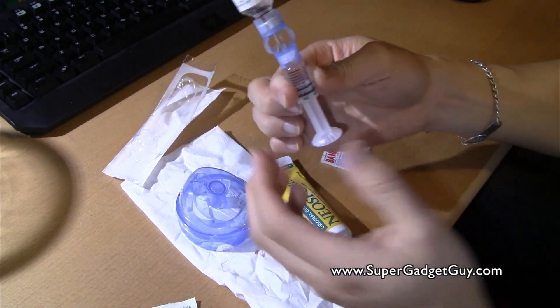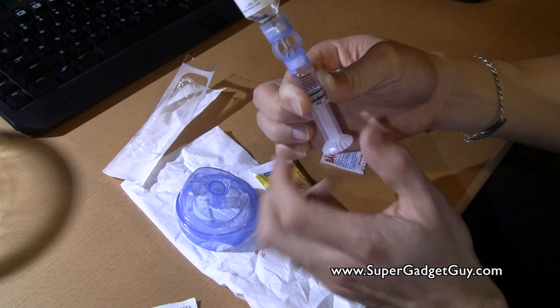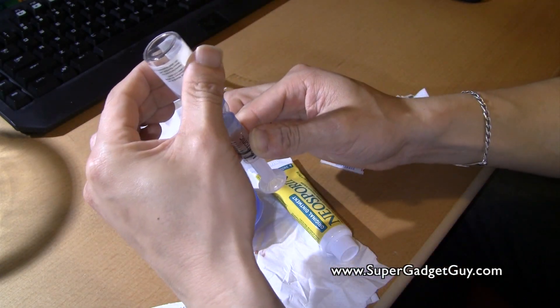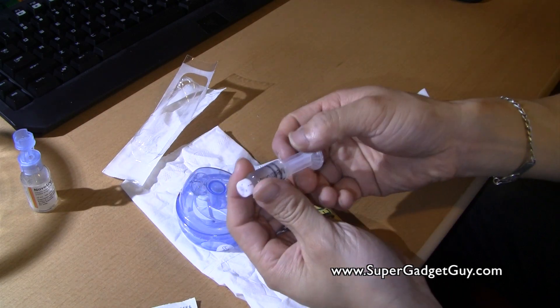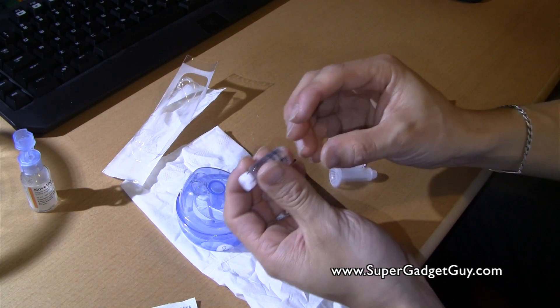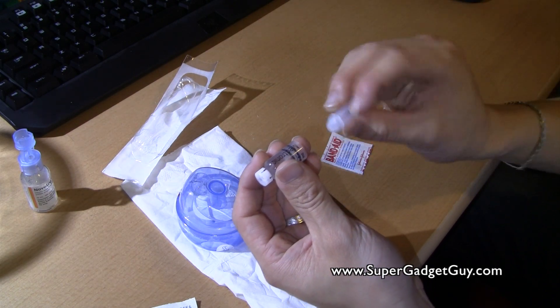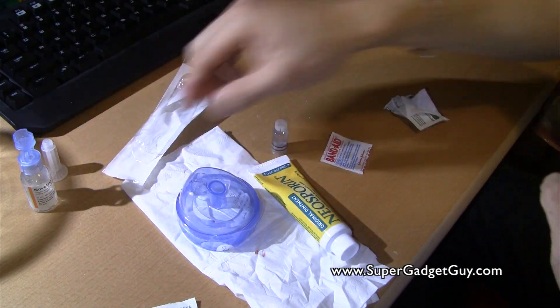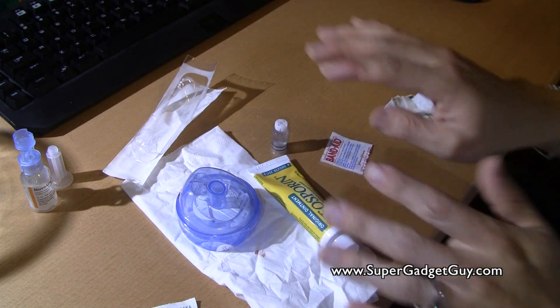Give it a very good tap — you won't break it. Then push the plunger back a little more. Basically you want to eliminate all the air bubbles in the reservoir, because the air bubble won't kill you but it will make it inaccurate — you do not want to infuse air when you want insulin into your system. I just pull a little bit past 120, looks like the 125 mark. Then I loosen the back of the plunger a little bit by twisting, then twist the plunger from the side and pull out. This little reservoir is ready. You remove the back — using a twist motion only, not pulling — to avoid drawing air back in. I put it aside; I don't throw it away yet because sometimes there's a connection issue with the infusion set and the reservoir.